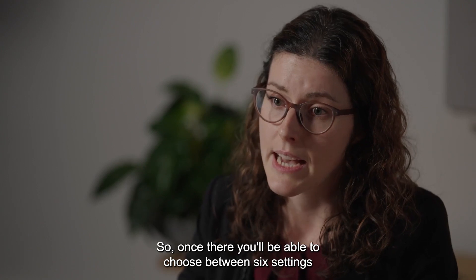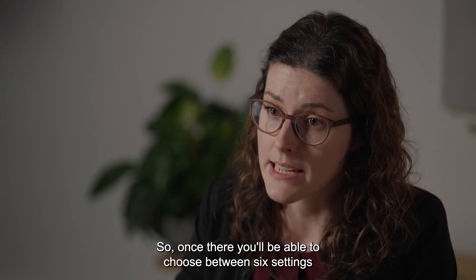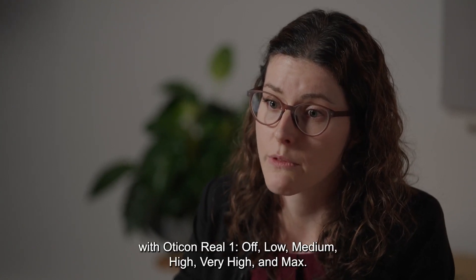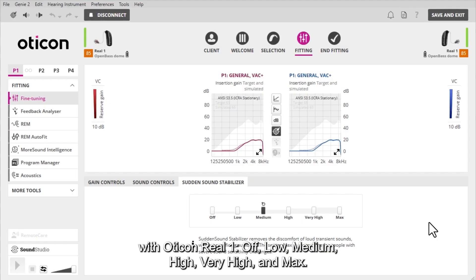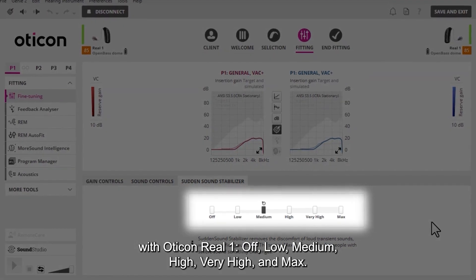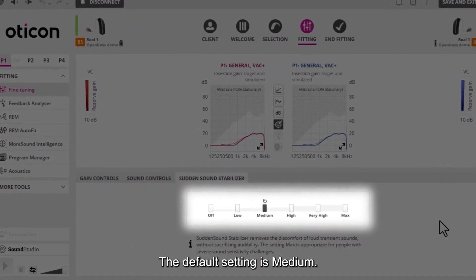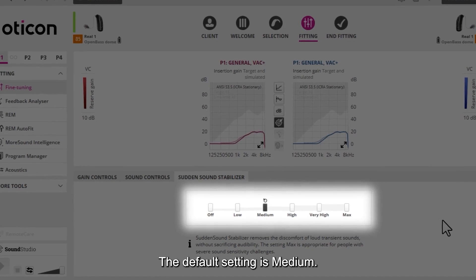Once there, you'll be able to choose between six settings with Oticon Real 1: Off, Low, Medium, High, Very High, and Max. The default setting is Medium.